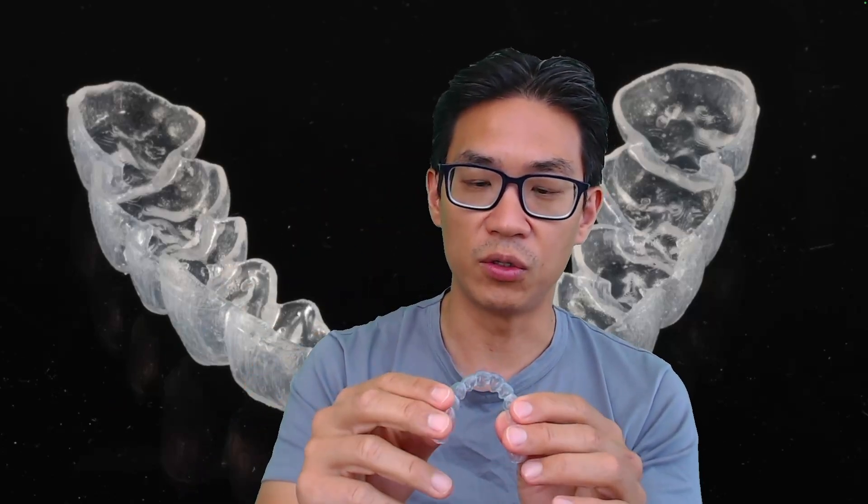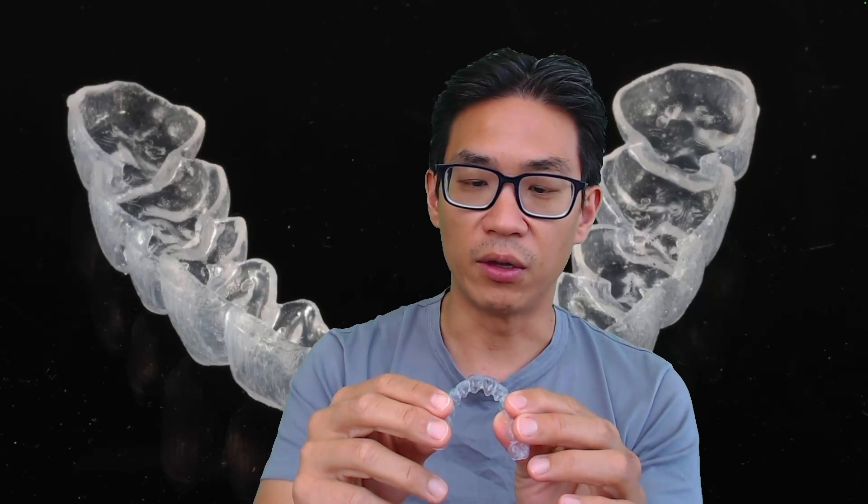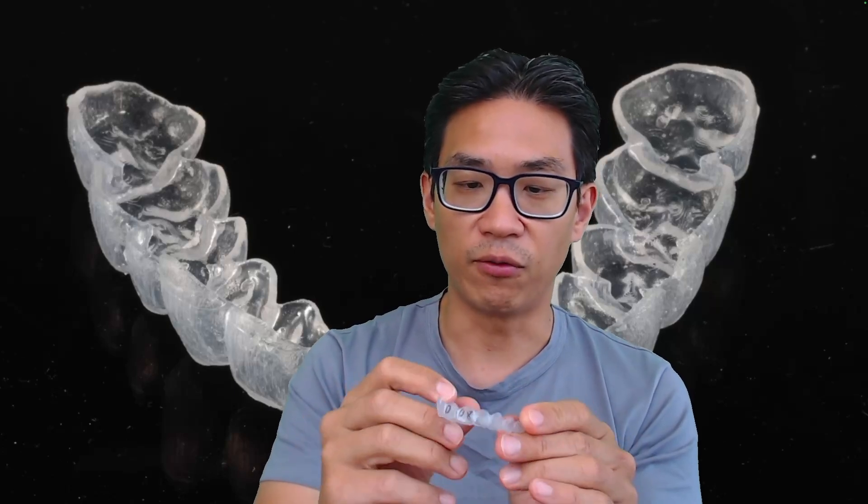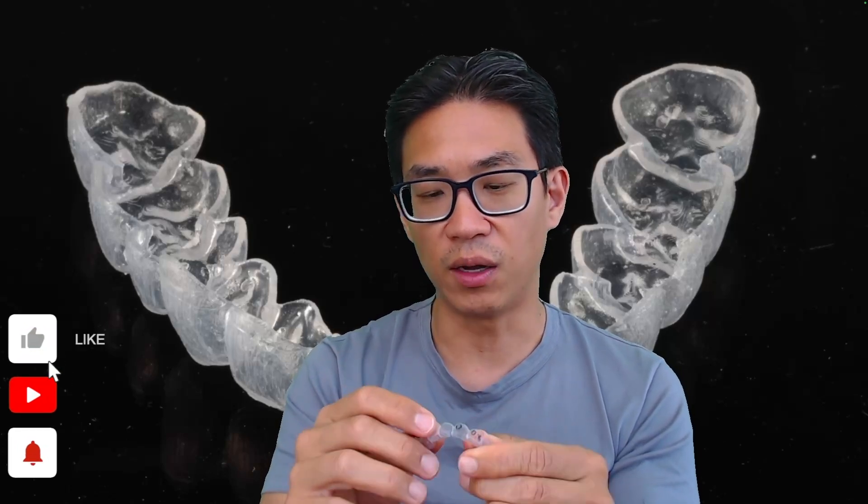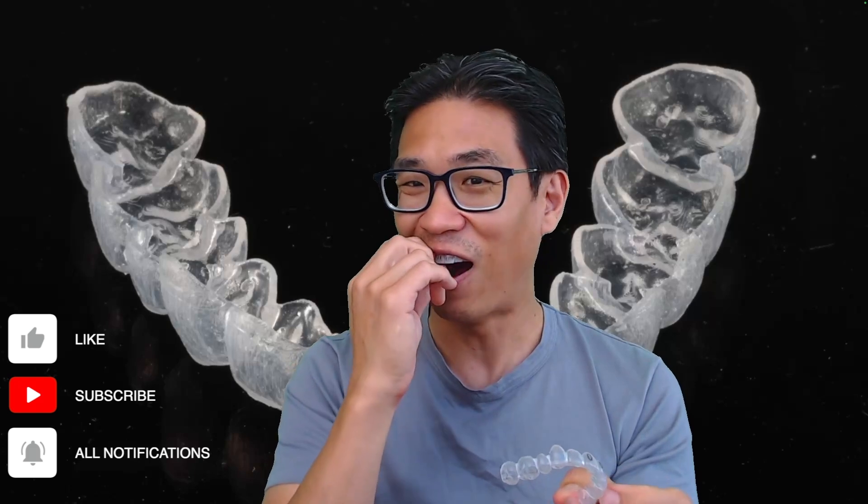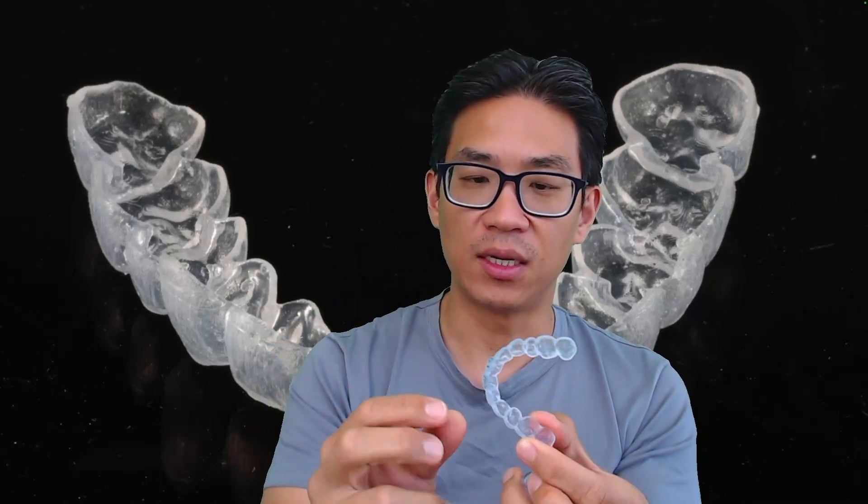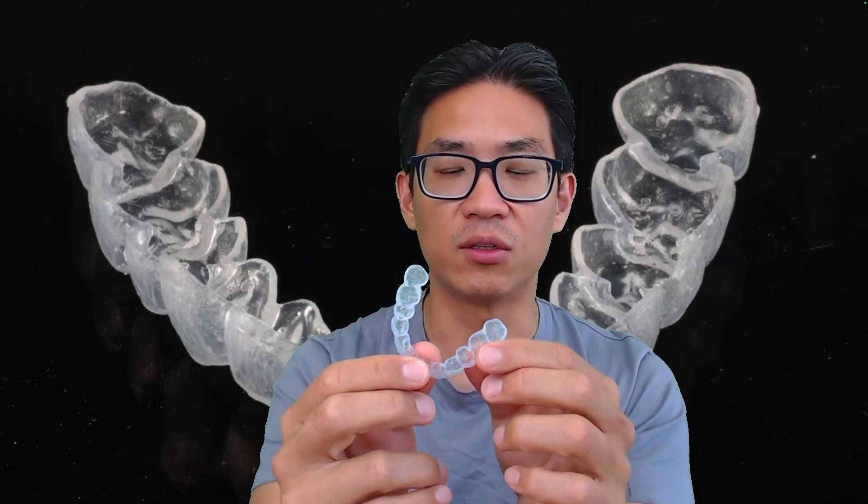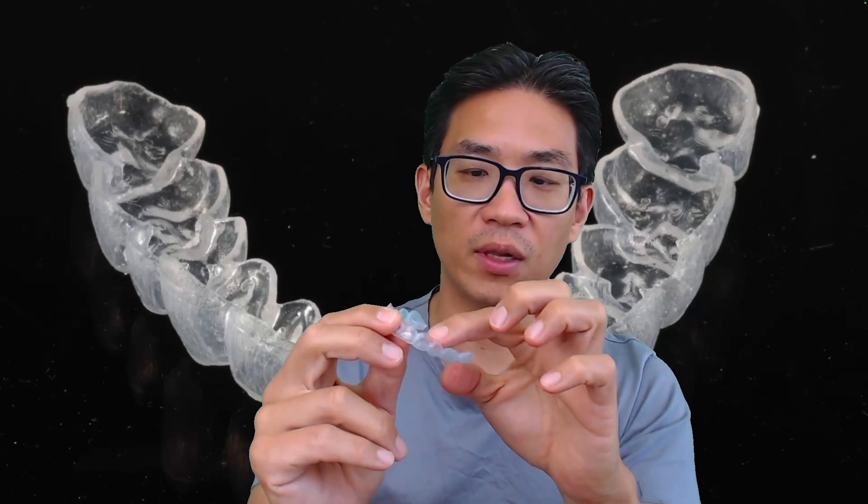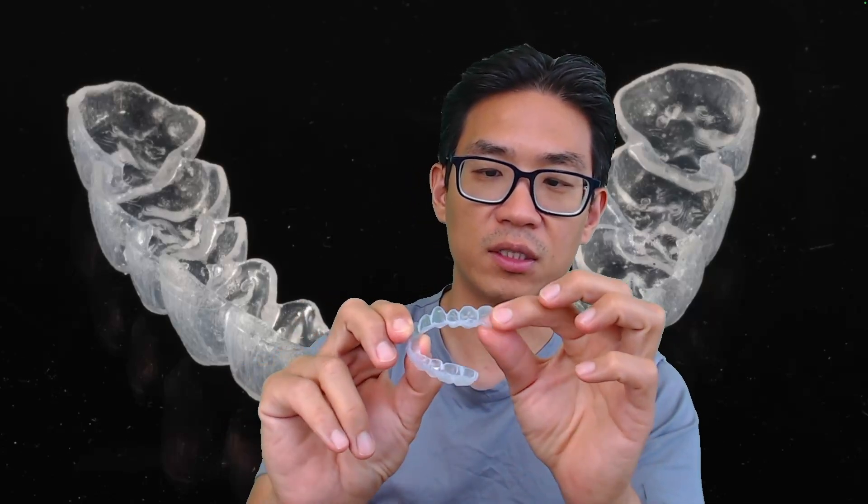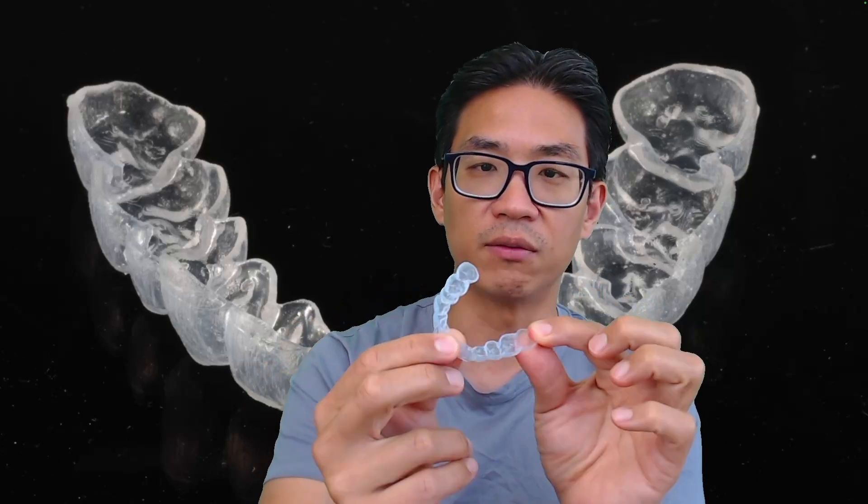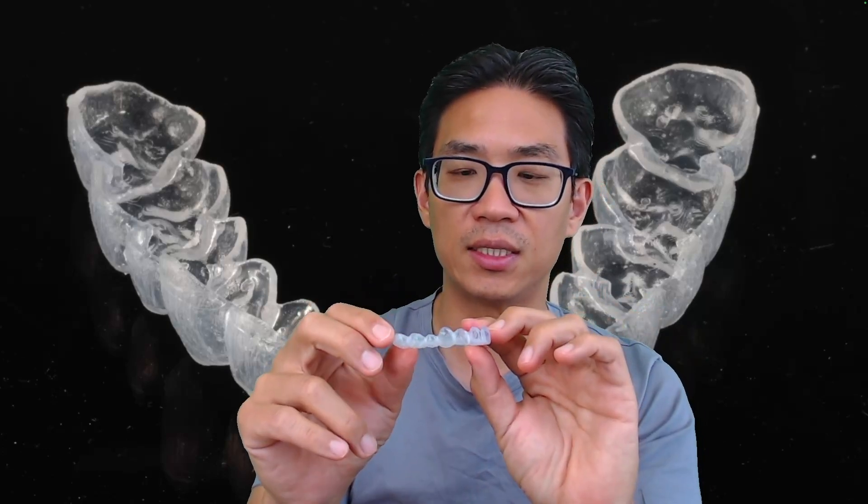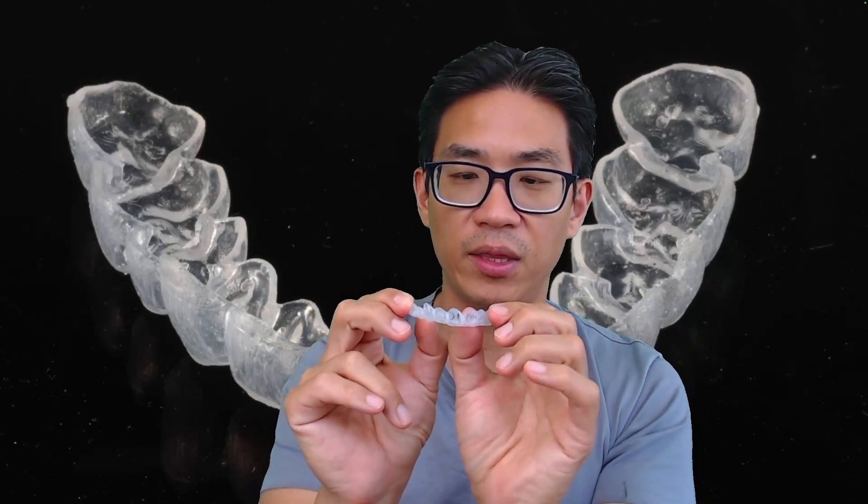I printed this out about six months ago, used it around three to four times for whitening and it seemed to work well. It was a little tight, so I added a small offset of 0.1mm and that's what I'm wearing now. It fits better and I've made a couple changes in terms of just lowering the lingual aspect of the tray and also relieving on the distal just to allow for better seating of the tray.